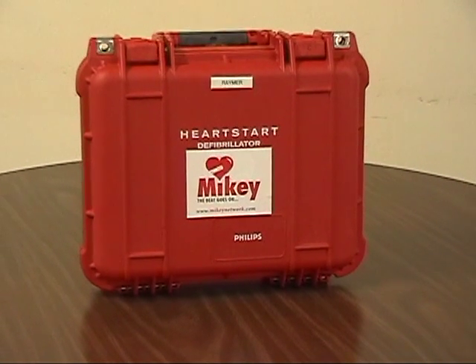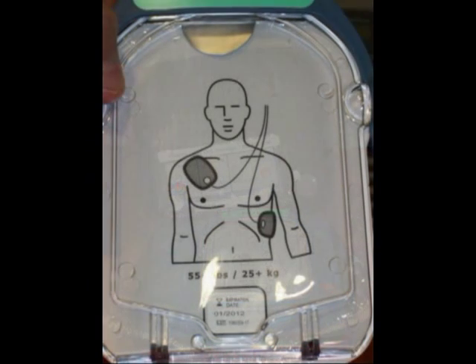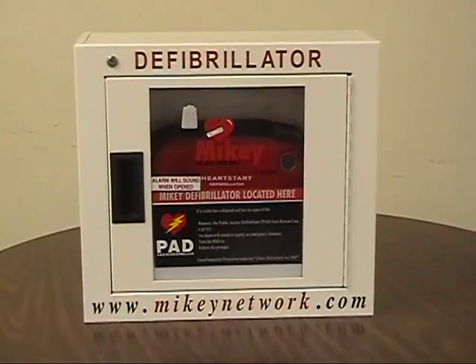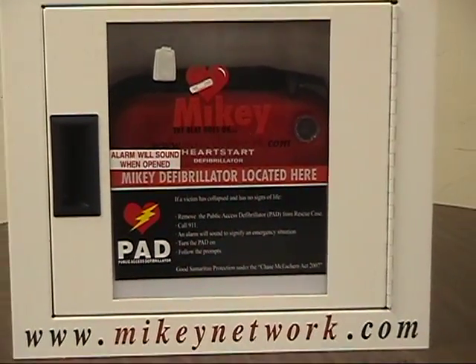The purpose of this short video is to review the six-month inventory check and the monthly operational check for your public access defibrillator, otherwise known as PAD. The PAD we'll be demonstrating in this video is the Philips on-site. Unfortunately, EMS expertise is limited to this model. We endorse any PAD that is Health Canada approved.